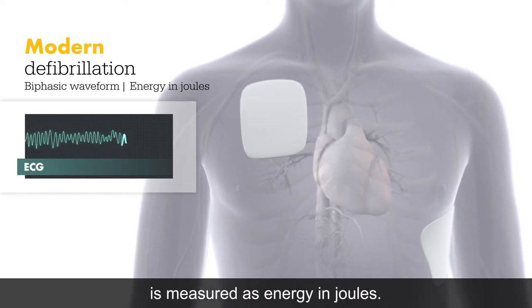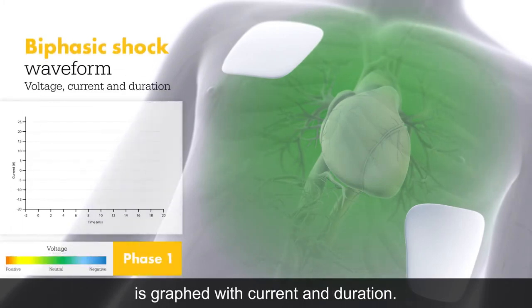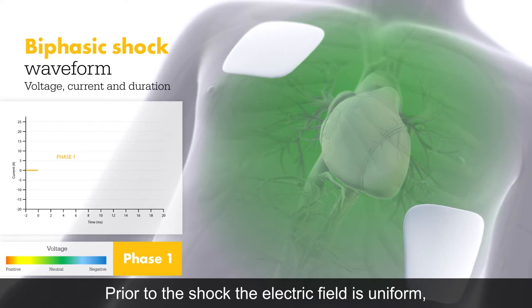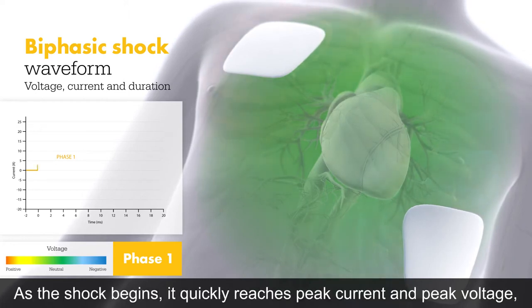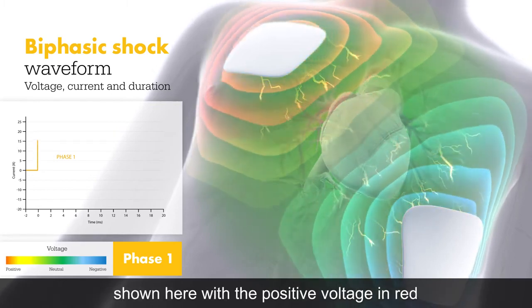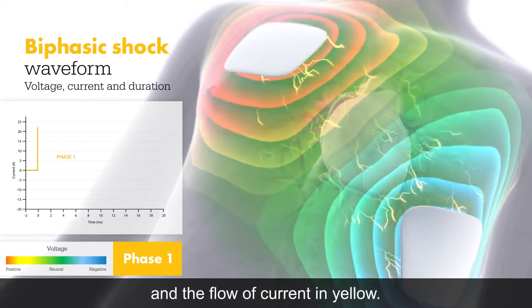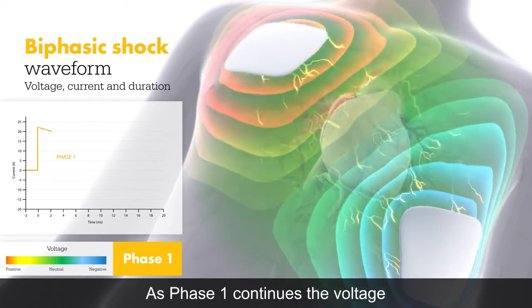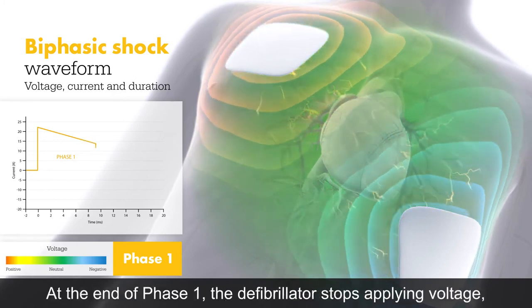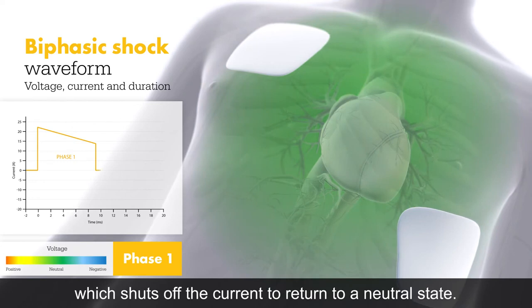The total electrical output of a defibrillation shock is measured as energy in joules. The defibrillation waveform is graphed with current and duration. Prior to the shock, the electric field is uniform as shown by the green torso. As the shock begins, it quickly reaches peak current and peak voltage — shown with positive voltage in red and negative voltage in blue, and the flow of current in yellow. As phase one continues, the voltage and resulting current decrease over time.